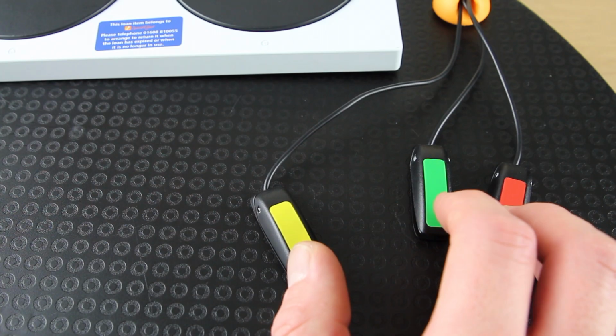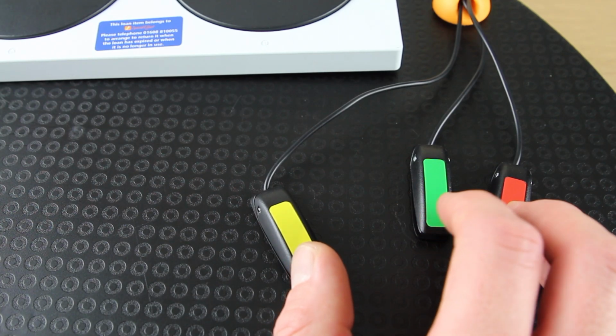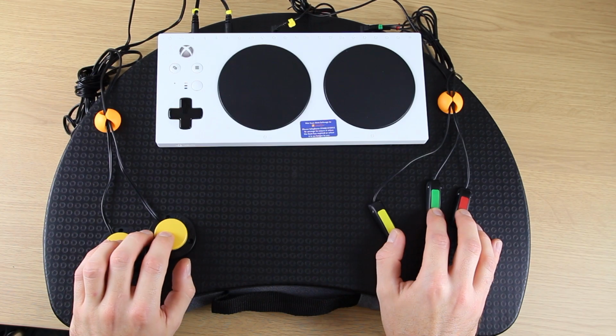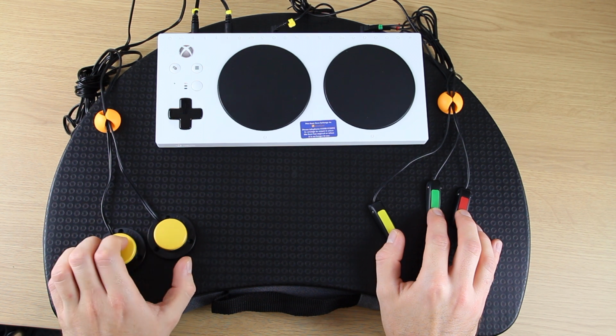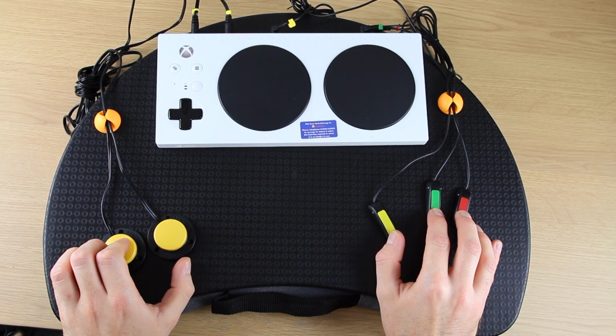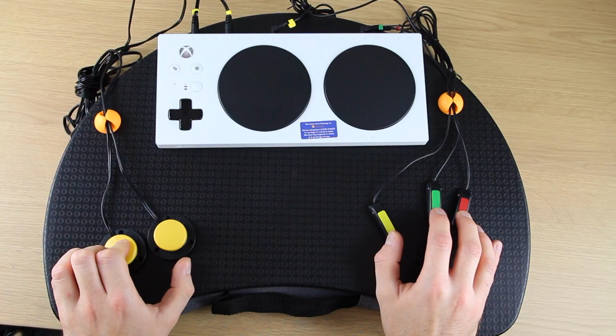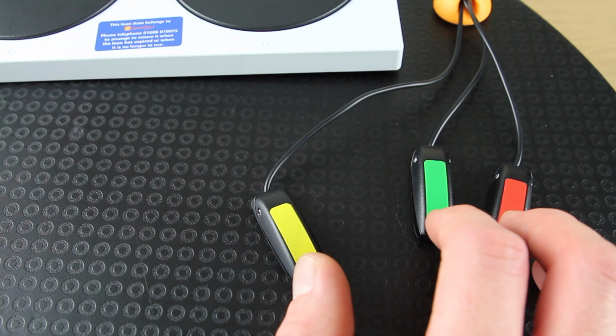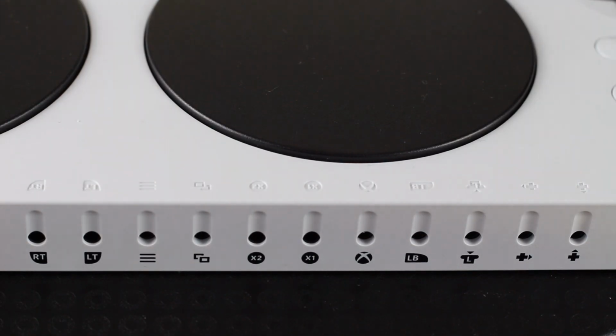In the adaptive controller's profile mapping, you can also add a shift button to enable you to use a switch as two functions. Here we will add menu and rewind functions to our existing gas and brake switches. By adding a shift switch, we will be able to get 4 button functions from 3 buttons.